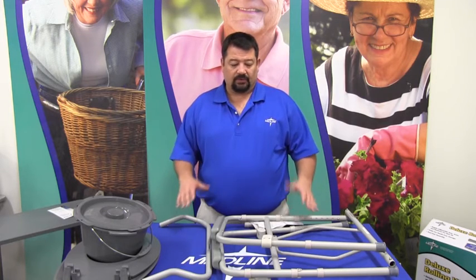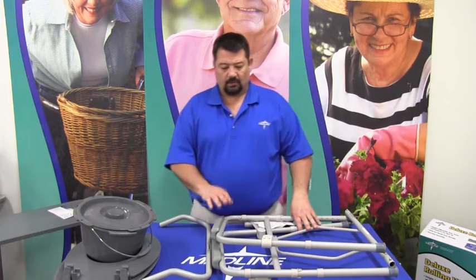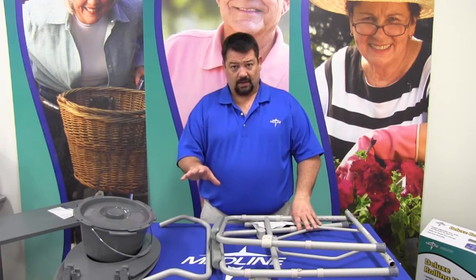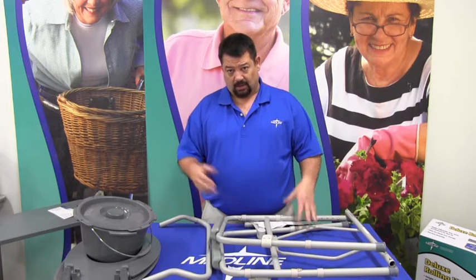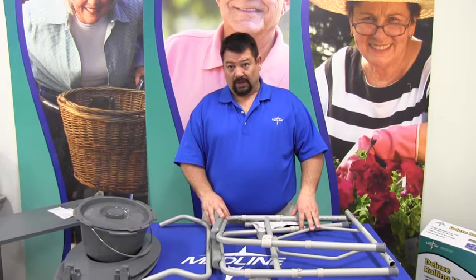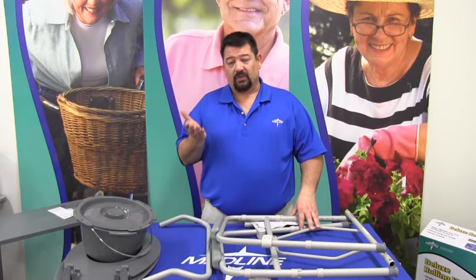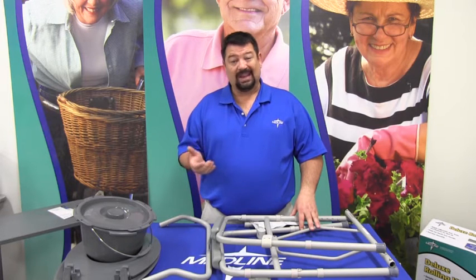The other option is three-in-one commodes. Three-in-one commodes mean that the commode can be used as a bedside. It can be used over the toilet as a toilet safety frame to help you get up and down, and as a raised toilet seat — a platform that raises higher than the normal seat to allow you to get on and off the commode easier.